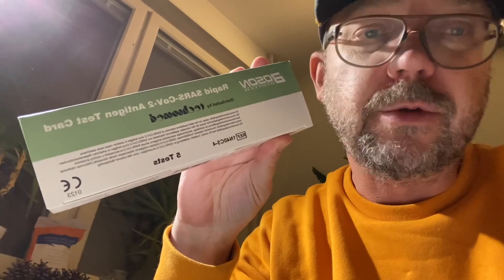I'm going to do a little short video for all of you who are about to make an antigen test against COVID-19. As you can see, I have a temperature of 36.3 degrees so I don't have a fever, but you can hear from my voice that I'm in pretty bad shape — I probably just caught a really bad flu. Regardless, in these times you don't want to spread something you're not aware of, so I'm going to quickly review how you make the antigen test and show you stepwise how to carry out the entire procedure properly.